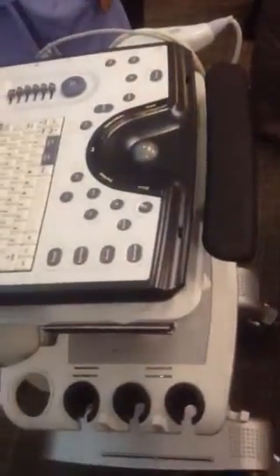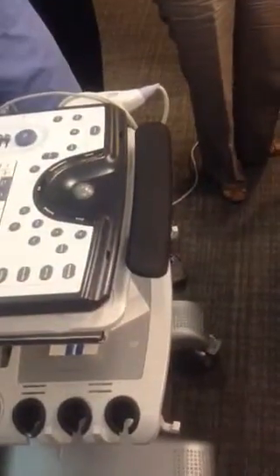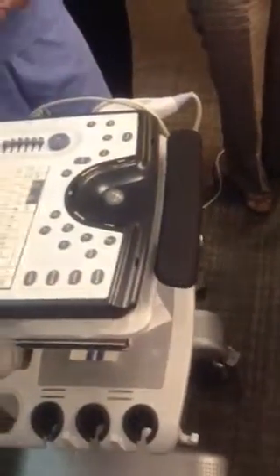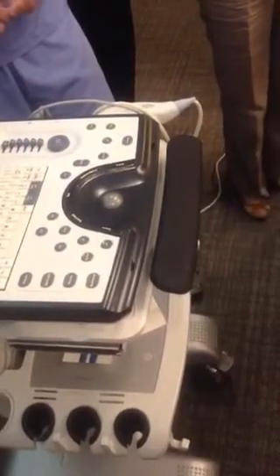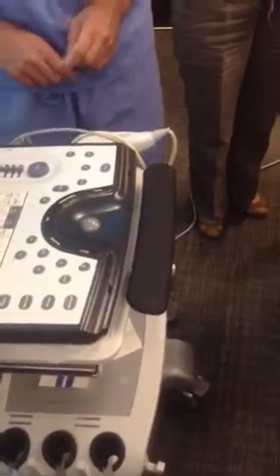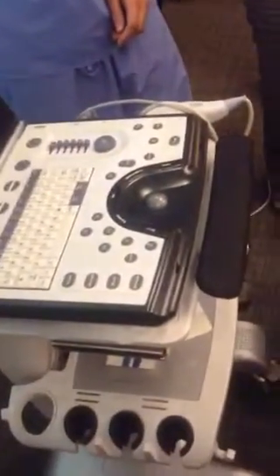So, you mind if I just add in one thing? So what we're doing right now, this is assuming you didn't upload the information from Epic and do the exam. Right. So if you're manually entering the patient's name in there, this is the way you would do it. I'm just asking because these are all the questions I had in my head. Right. Yeah. So you could actually manually enter the patient right now.